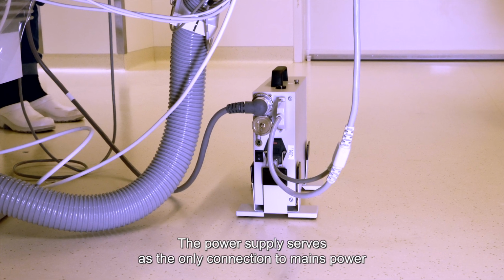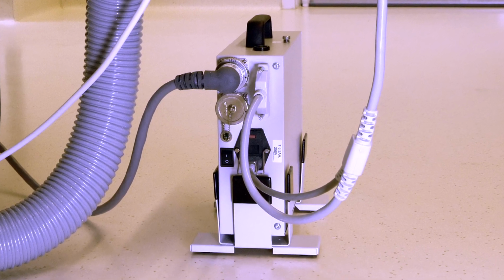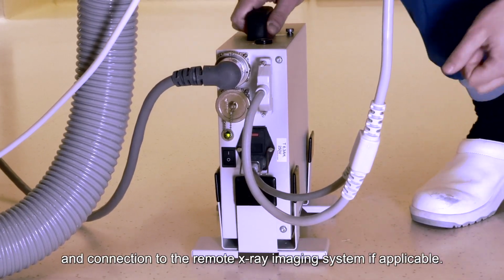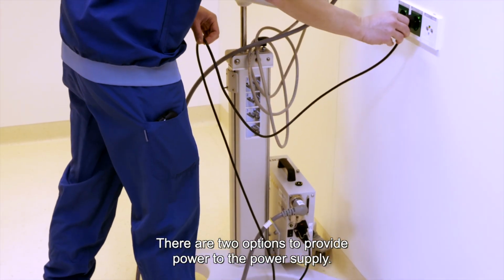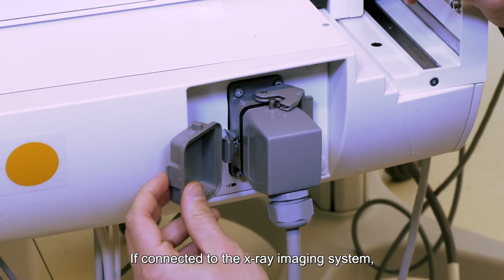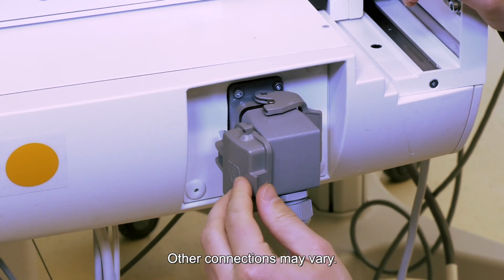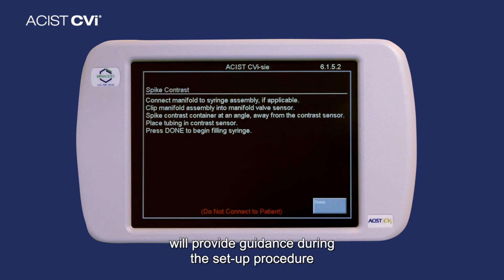The power supply serves as the only connection to mains power and provides power to all subsystems of the CVi system. The power supply also provides the data interface connections between subsystems and connection to the remote X-ray imaging system if applicable. There are two options to provide power to the power supply. One option is through the socket. The other is through the X-ray imaging system connection. If connected to the X-ray imaging system, the CVi will get its power from there. This connection is to a Siemens system. Other connections may vary. Once the system powers up, the control panel on the CVi system will provide guidance during the setup procedure by displaying a series of on-screen prompts.